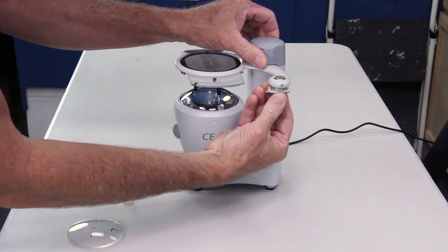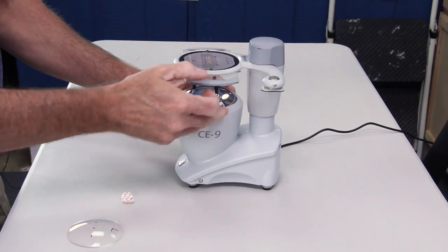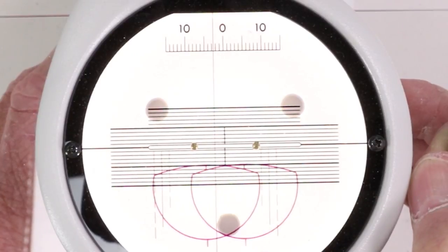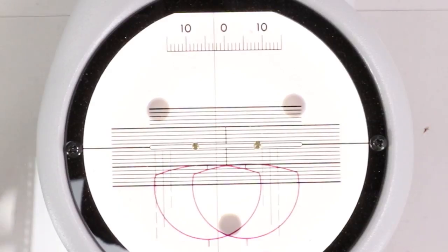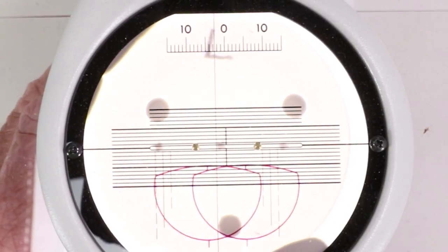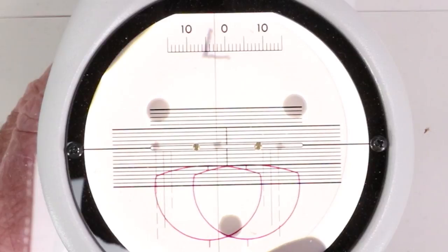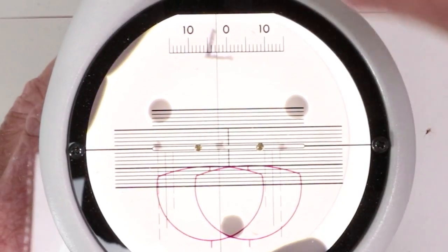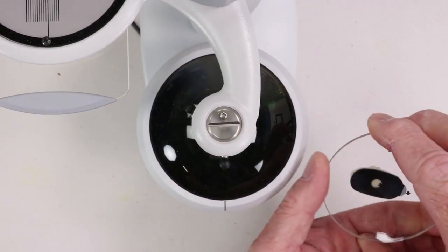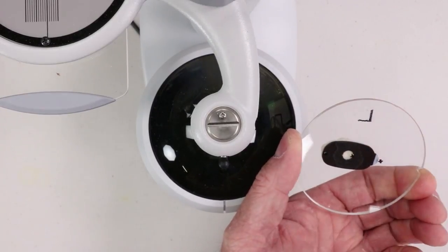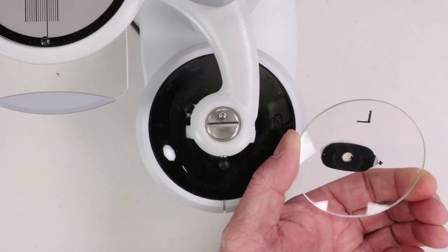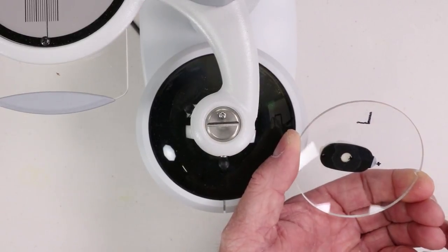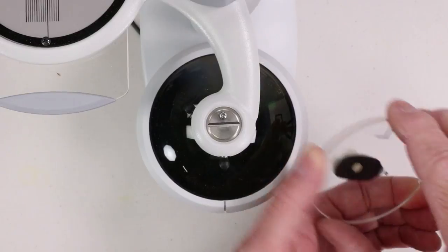Zero. One. Two. And a half. Left lens. One. Two. And a half. Beautiful. Double check. Left lens. The center of my block would be the center of my eye wire opening. The little X would be to the right of that. That would be left moved in. As it was worn, that's what it would look like in the blocker.